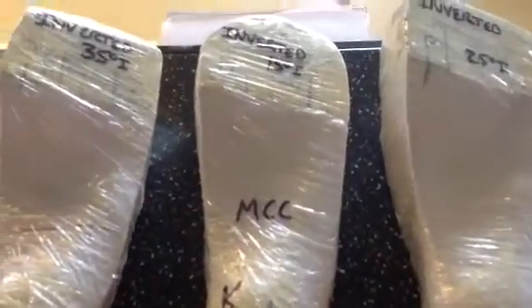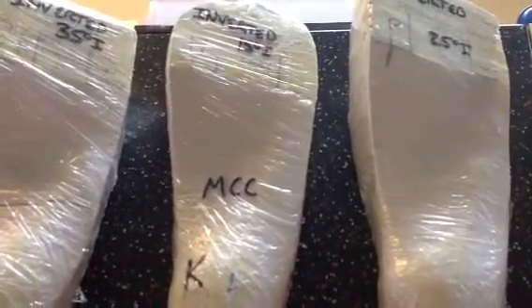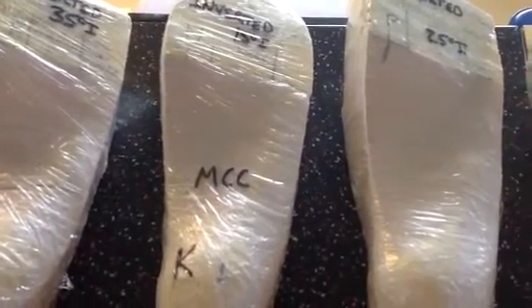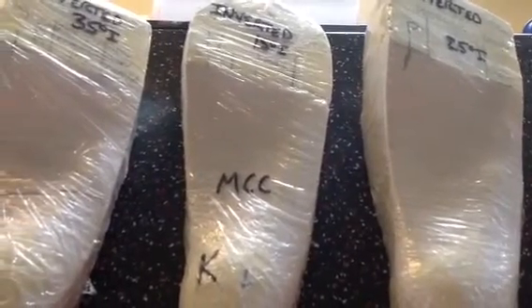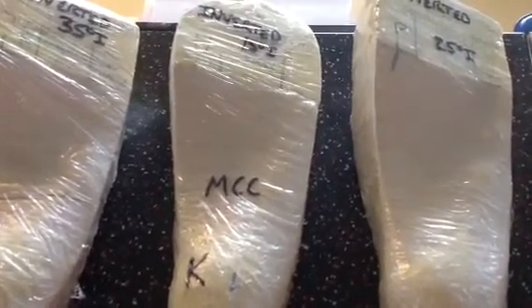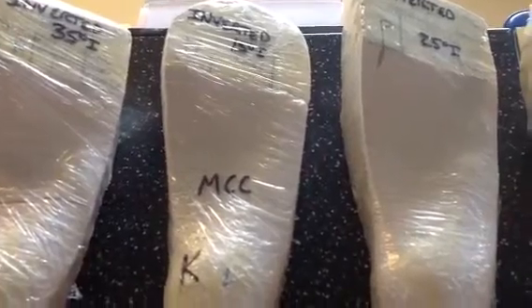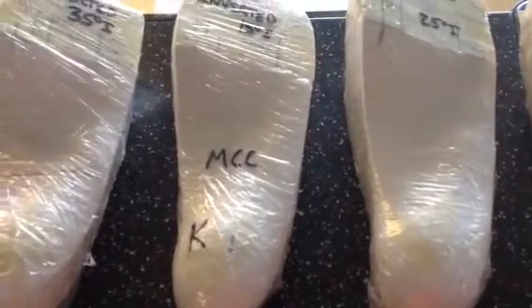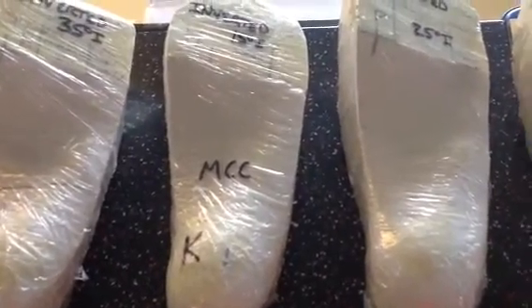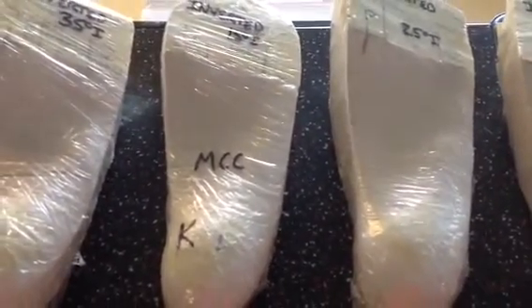If you go with a 15-degree pour — which many labs prefer because it's easier than higher inversions, and CAD-CAM systems make this practical — you'll get three degrees from the 15 degrees, two from the Kirby, and one from the medial column correction. This gives you a six-degree varus wedge, which can be very helpful.